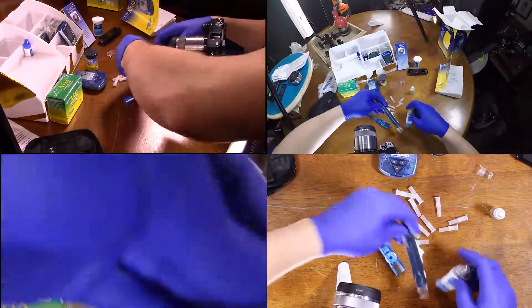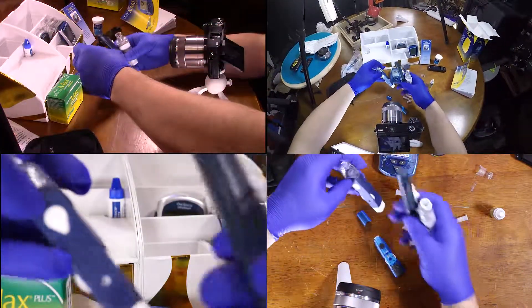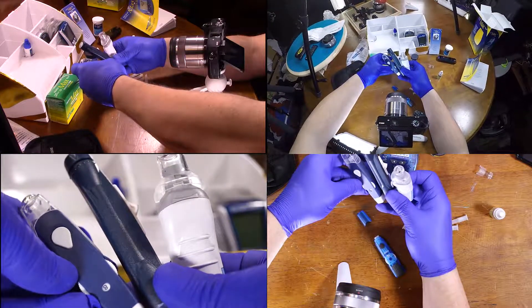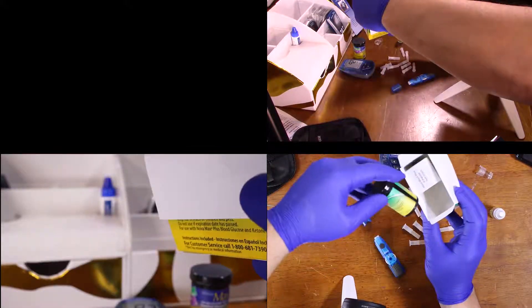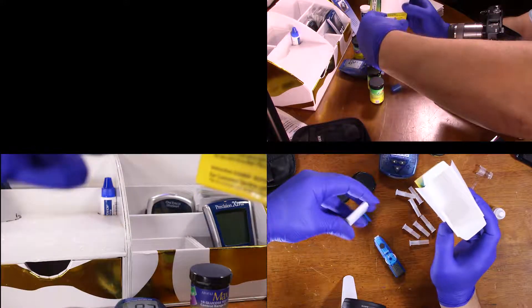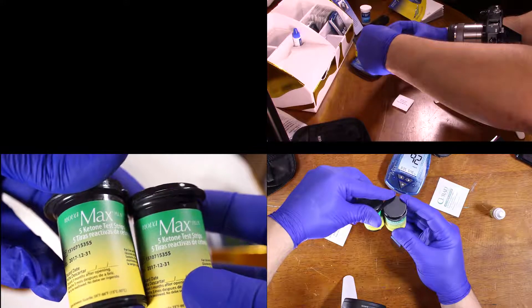You can use basically any one of these lancets here — any of these is going to pull blood. I don't know what the difference would be. We've got five ketone test strips in each container.